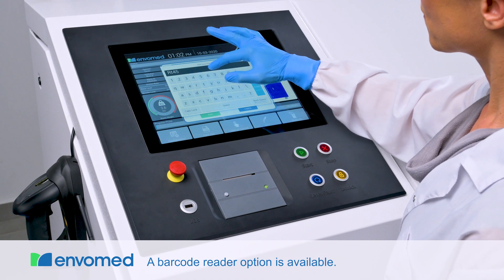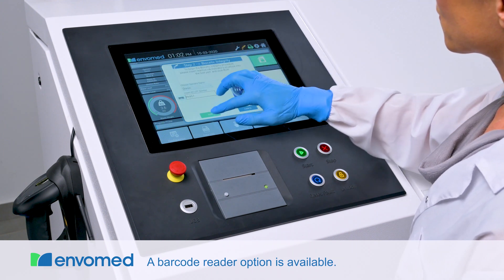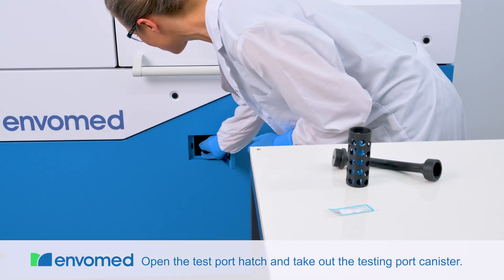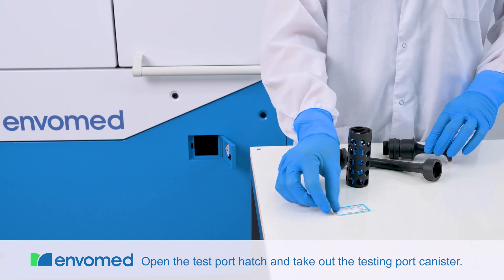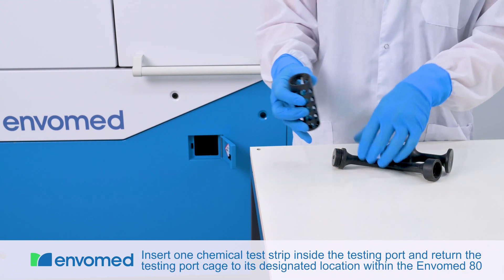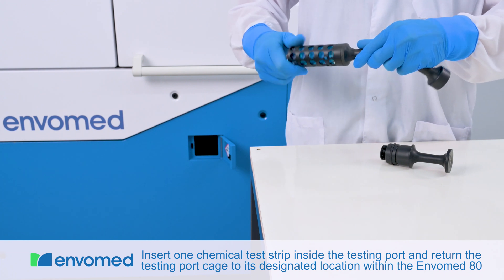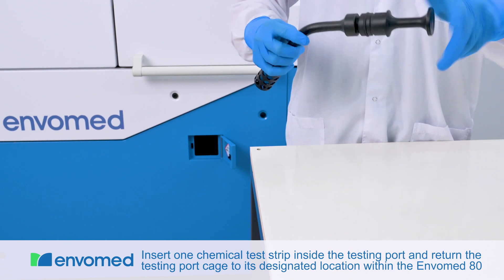A barcode reader option is available. Open the test port hatch and remove the testing port canister. Insert one chemical test strip into the testing port and return the testing port cage to its designated location within the Envomed 80 unit.